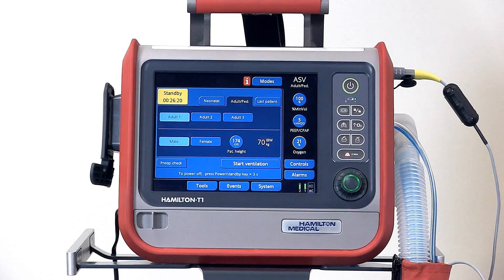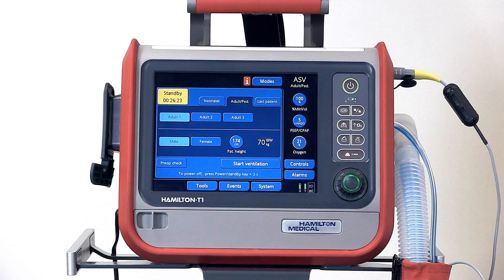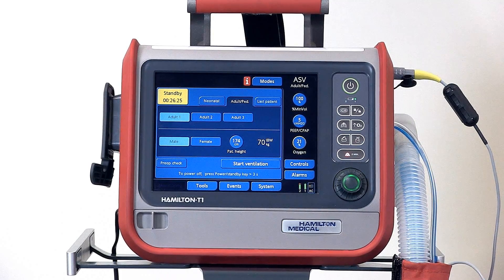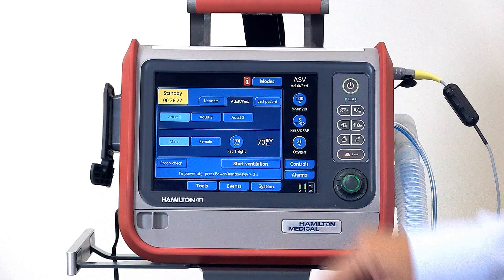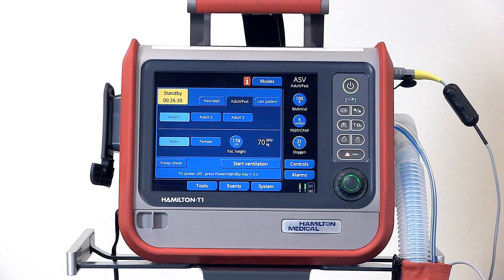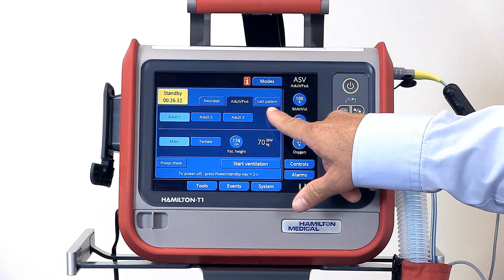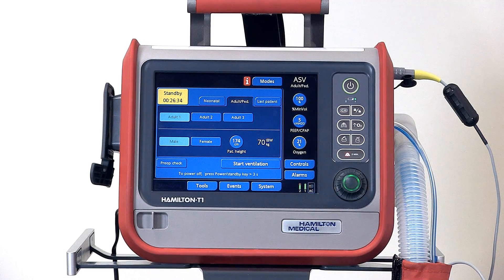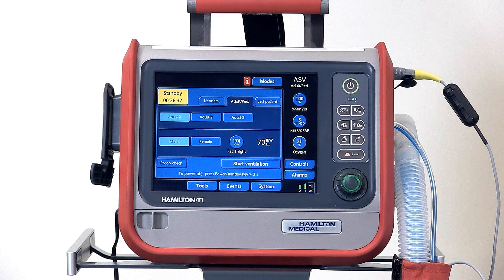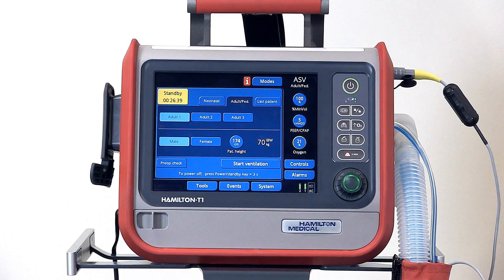First, select the patient group. Adult pediatric is for adult and pediatric patients down to three kilograms, or select neonatal for newborns up to 30 kilograms. You can also select last patient, which inputs the settings from the last time the ventilator was used, so don't use that on new patients.